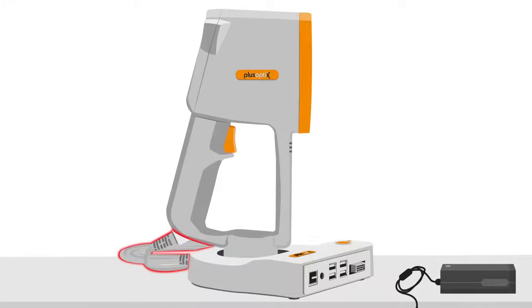The cable between cradle and measuring head is arranged on the back side of the cradle, so that the cable can be laid outside of children's reach.